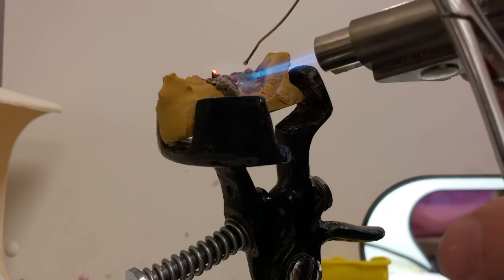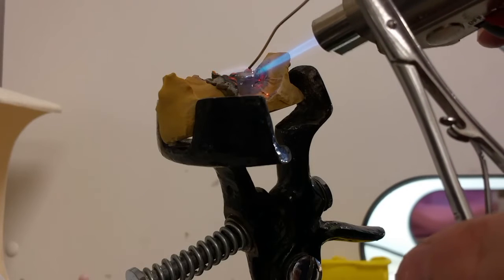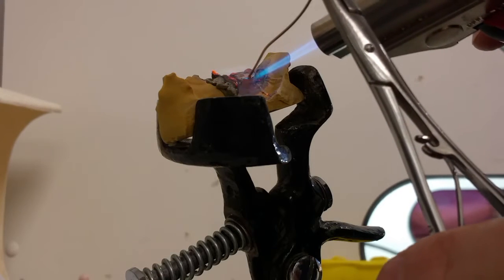You kind of wait until the flux turns into a clear liquid. I'm using the solder to kind of move the flux around, as you saw at the beginning.